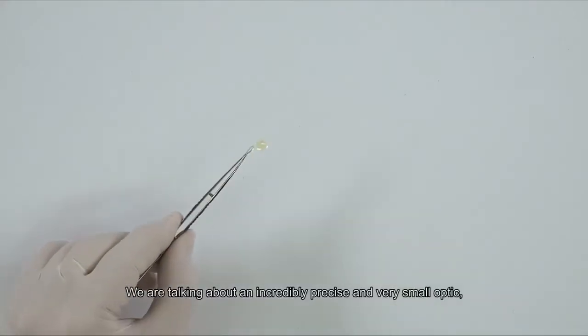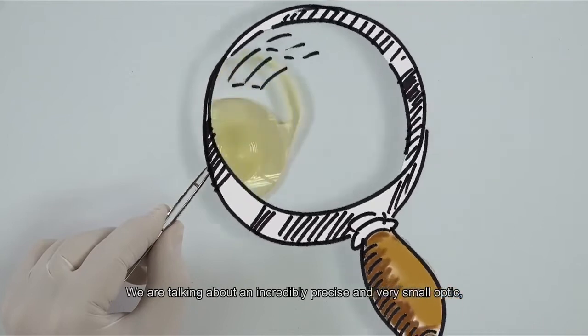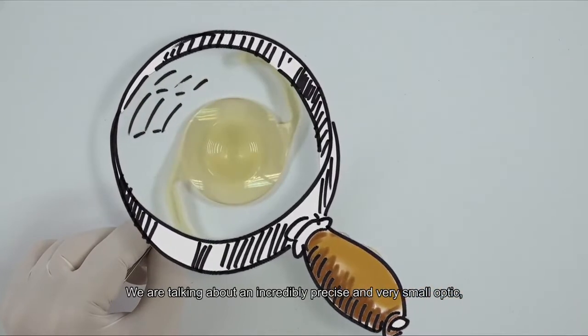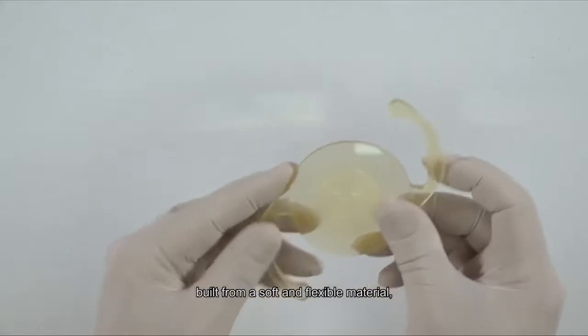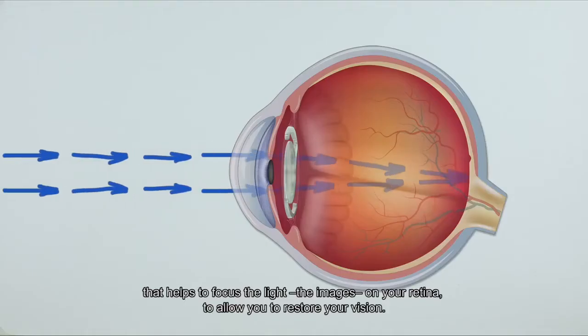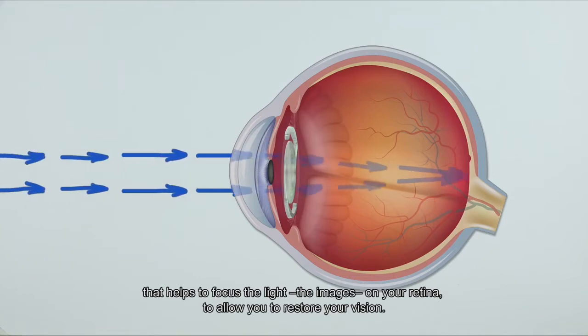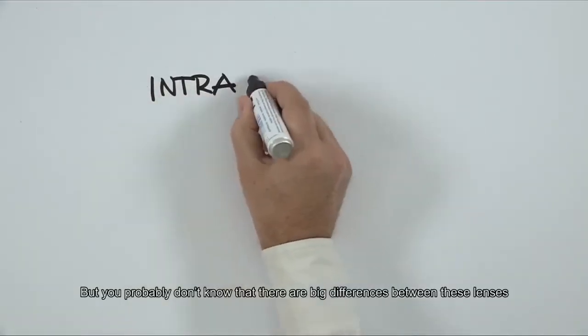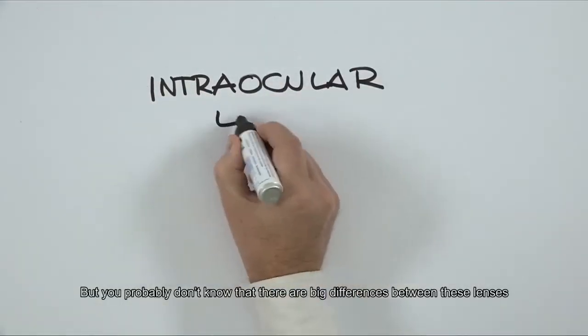We're talking about an incredibly precise and very small optic, built from a soft and flexible material that helps to focus the light, the images, on your retina to allow you to restore your vision.